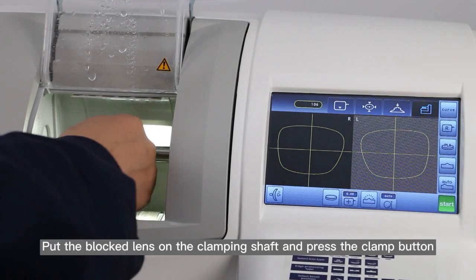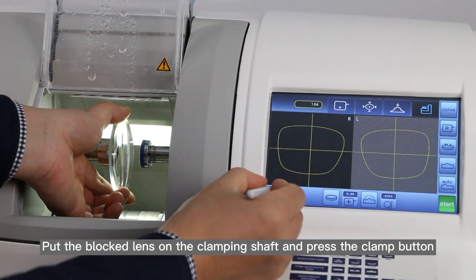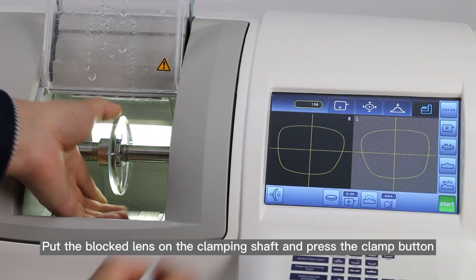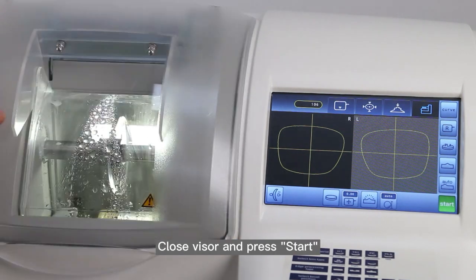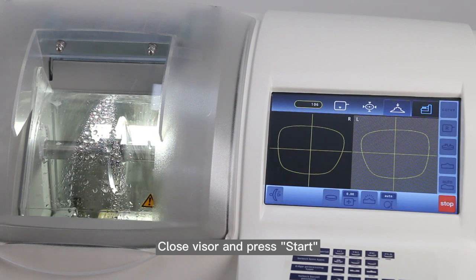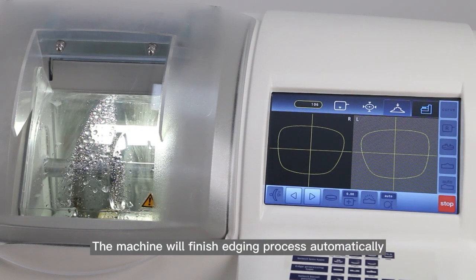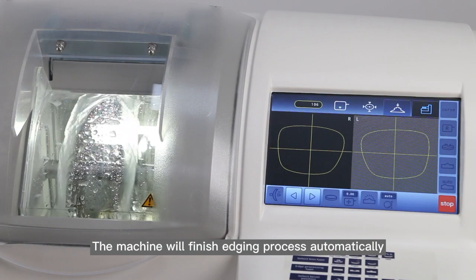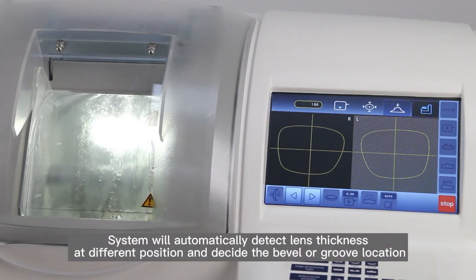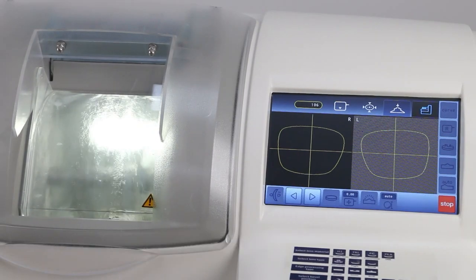Put the blocked lens on the clamping shaft and press the clamp button. Close the visor and press start. The machine will finish the edging process automatically. The system will automatically detect lens thickness at different positions and decide the bevel or groove location.